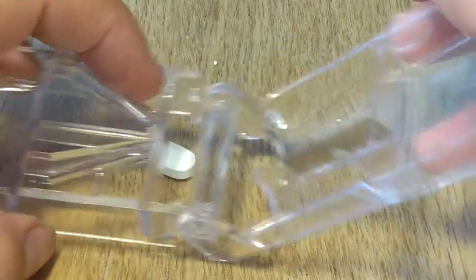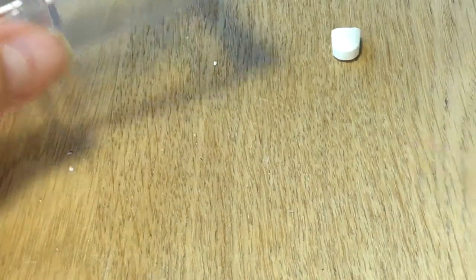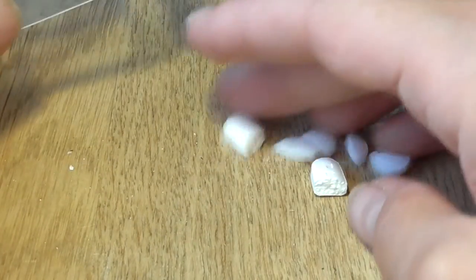So, you can end up with four sections. It helps a lot if you are used to sitting behind the table and cutting pills with a knife. With this device you can relax on your sofa, watch TV and cut pills.